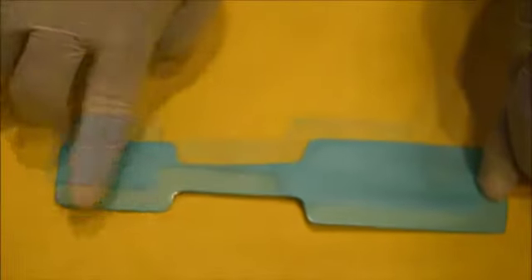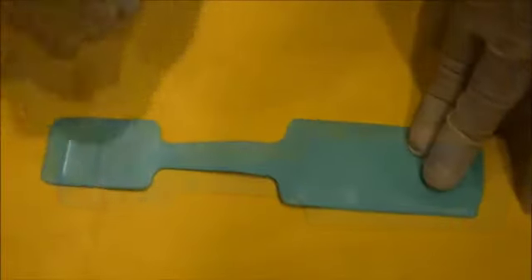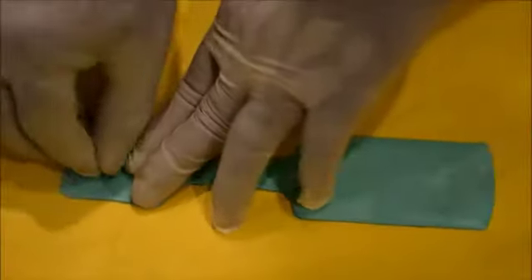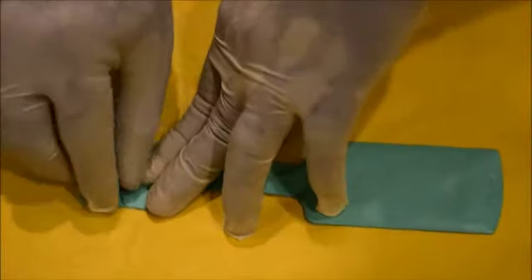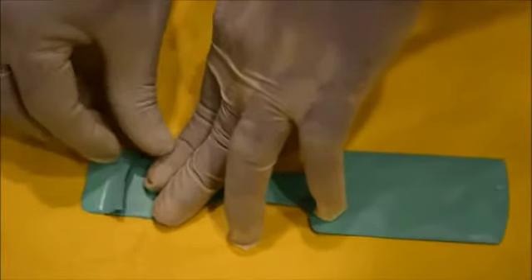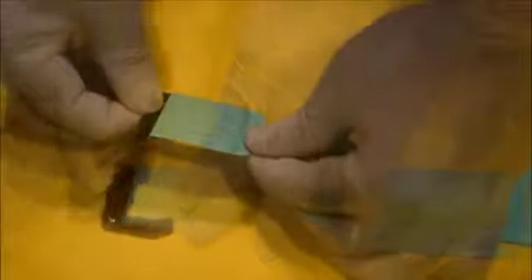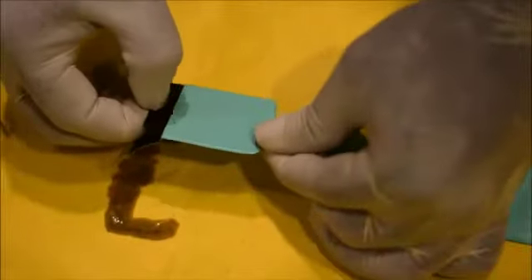The middle part of the film should not be blocked as it may cause air bubbles to get trapped in it, and that may result in dotted appearance over the image. Then the film packet is opened.